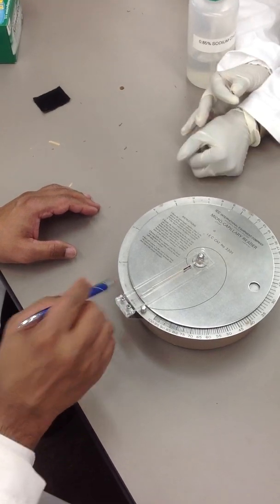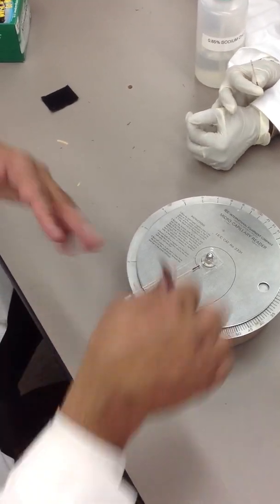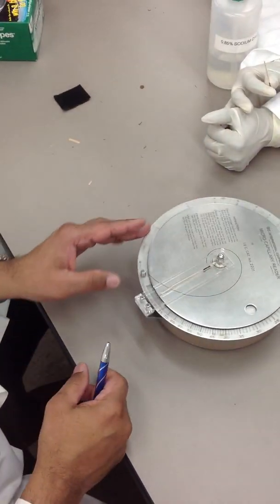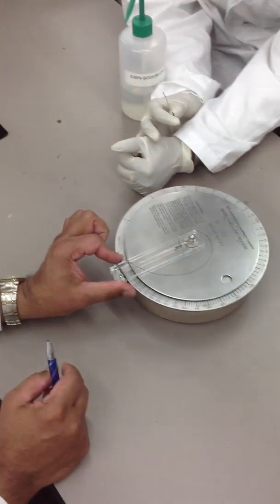So, if you don't see the 100 on the red line, you know you need to turn your plate around, right? So, the whole thing comes back.